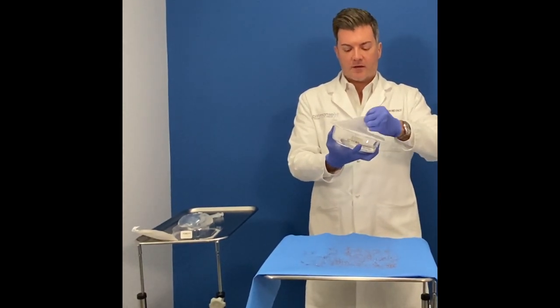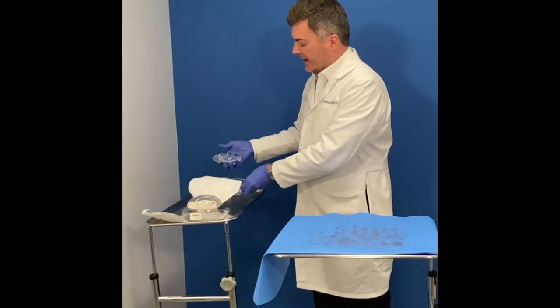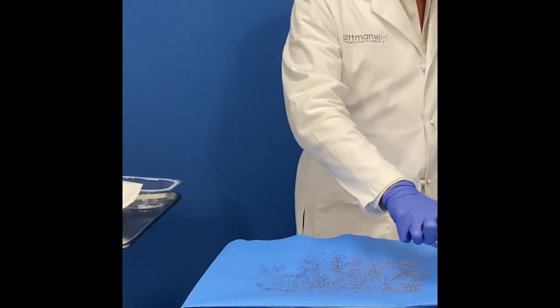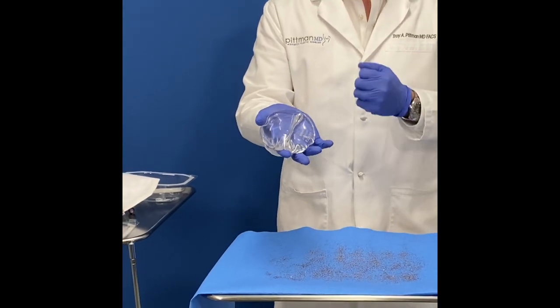Now we open this packaging, take the wet implant out, and when we run that over the glitter, you see the glitter isn't drawn to the implant.